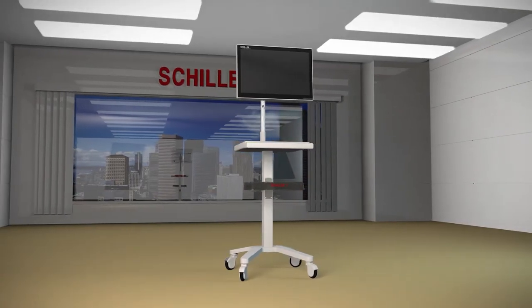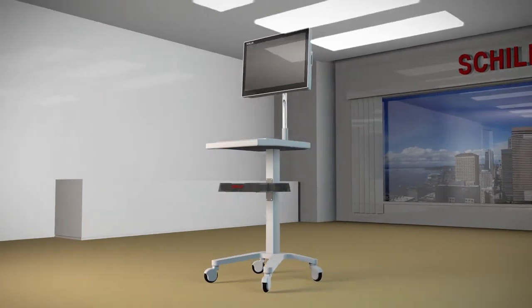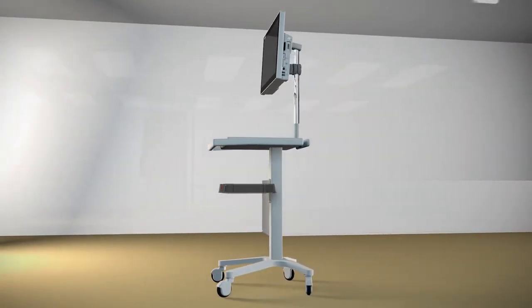The DS20 is an electrocardiograph, diagnostic spirometer, and vital signs unit designed for adult and pediatric use.